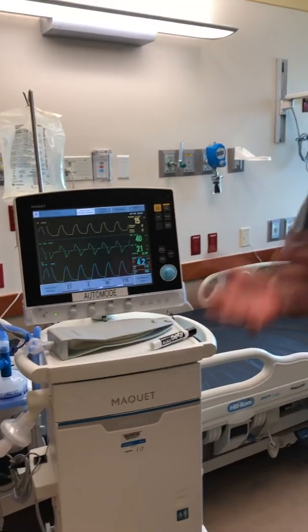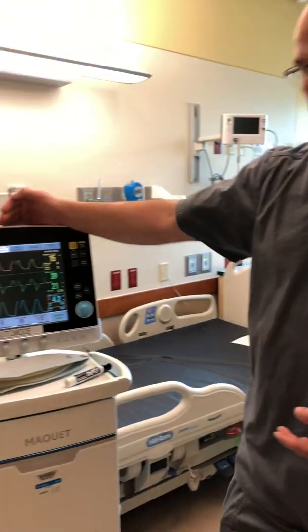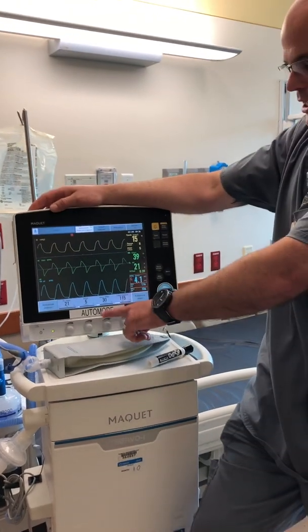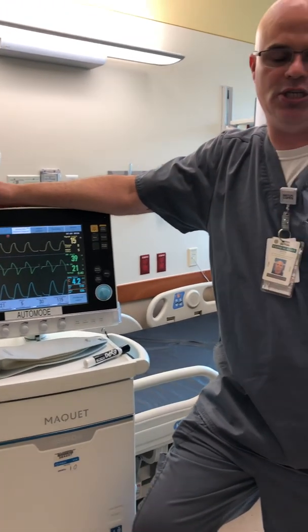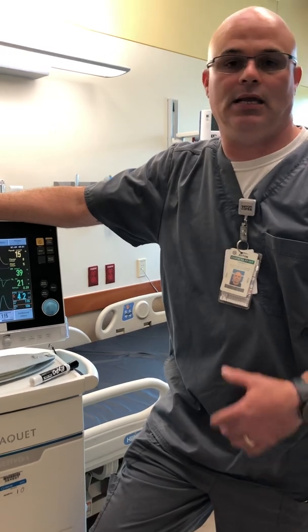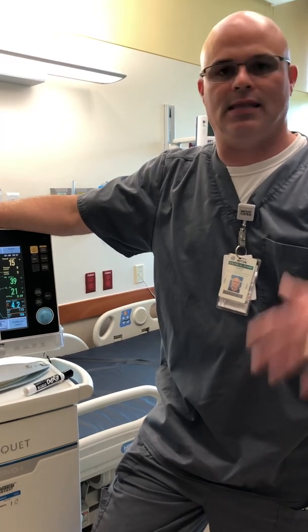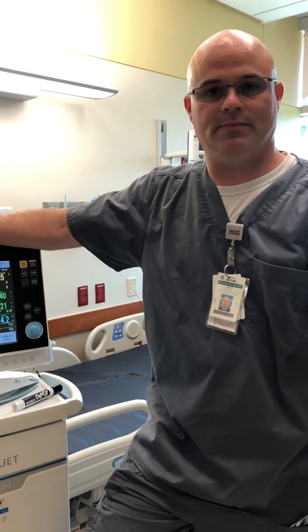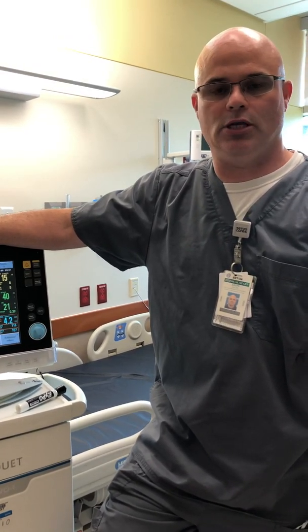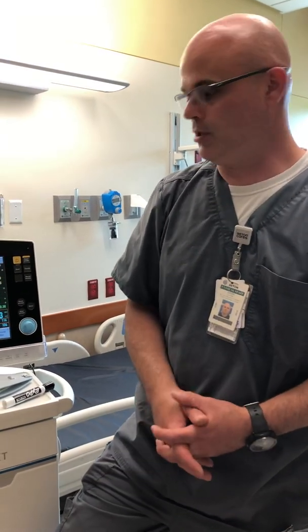So that's PRVC auto mode: PRVC with a backup rate if the patient goes apneic, and volume support whenever the patient triggers any breath. What we'll likely see most is when the patient drops back into the backup rate due to a sedation issue — someone gets over-sedated, their respiratory drive is knocked out, they stop breathing, and they go into the backup rate. We can then look at how often that happens and correlate it with sedation administration times to adjust accordingly.